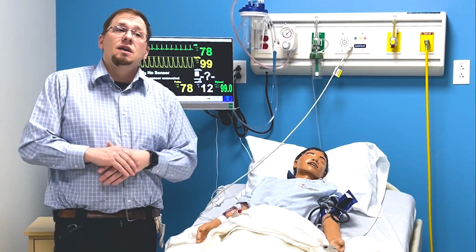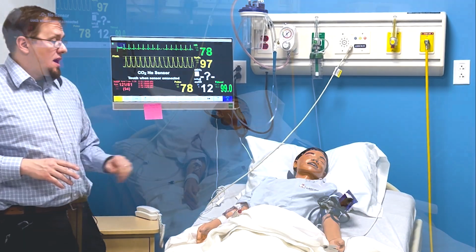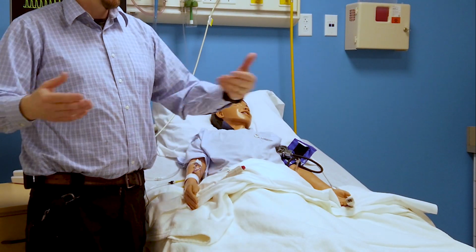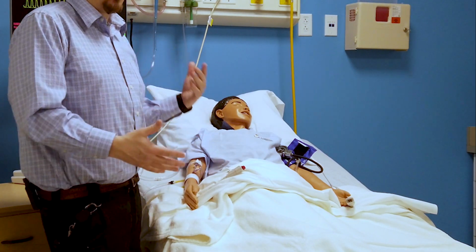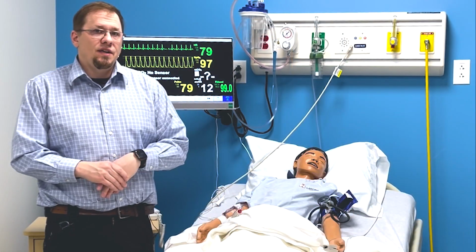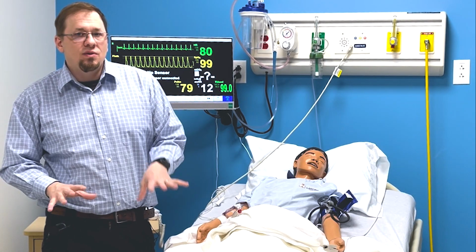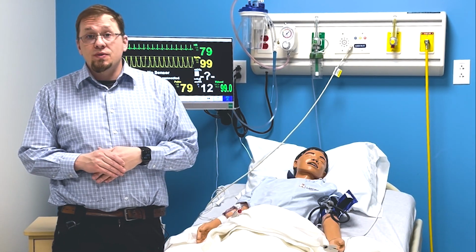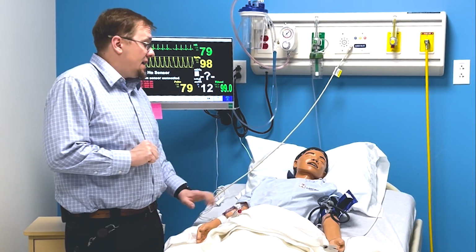All right? So that's kind of some of the starter rules, and then we're going to go on to the mannequin from here. We have lots of different mannequins. Before we put another mannequin in this room and expect you to do things with it, we're going to give you an orientation to the mannequin. They're all a little bit different. They all have some more features, less features, different features. So this is a high fidelity mannequin, and that's kind of fancy words for looking to the mannequin for all of your cues. Notice there's no faculty in here to ask or anything like that.